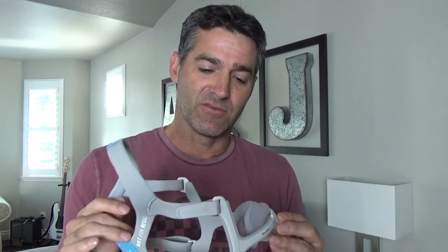Let's first talk about the fittings and the inner workings of the mask itself. It's a fairly standard mask — it covers up your entire nose. If you're new to CPAP, using a mask that covers your nose is usually advisable. You have less surface area than a full face mask, but you still need to control for mouth leaking using a double-sided chin strap or mouth guard, or some people tape. So long as you don't have a deviated septum or chronic nasal congestion, you'll be just fine with it.